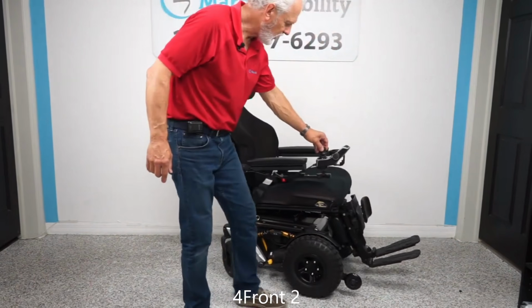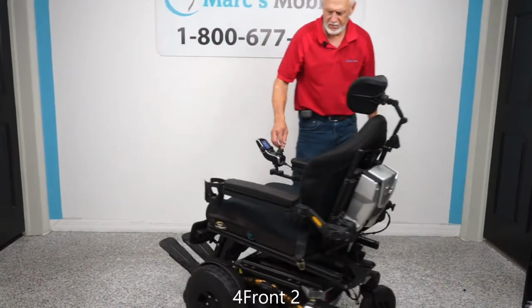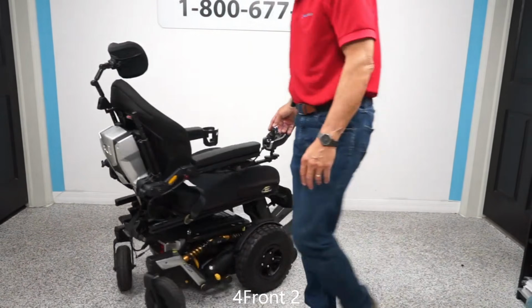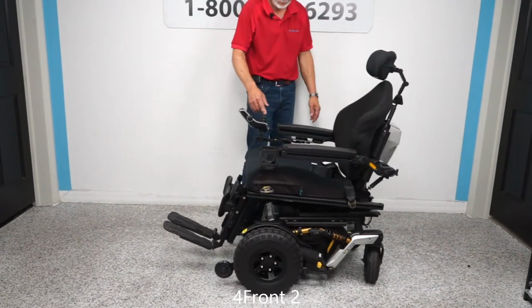Now on the 4Front, both of these units, whether it's the HD or the non-HD, are going to take 75 amp batteries, but these are also going to need to be the recessed post, like flat terminal batteries. You are not able to slide in the batteries that have the terminals that stick up. If you're not familiar with batteries, it's like a car battery, not the same concept, but it is where you have that lead that sticks up. That's what you're going to call a flag post battery. And you actually need the flat recessed post batteries for both of these units.